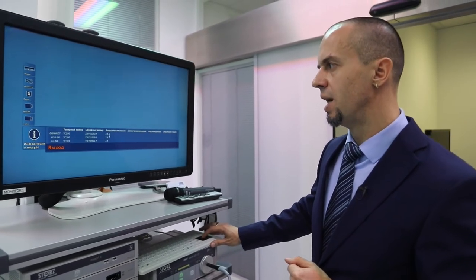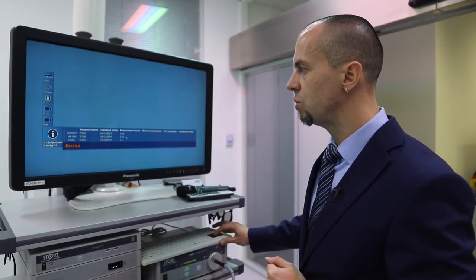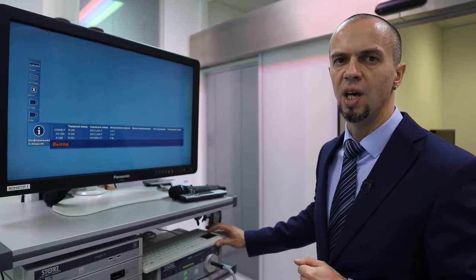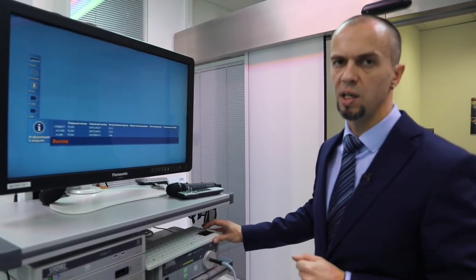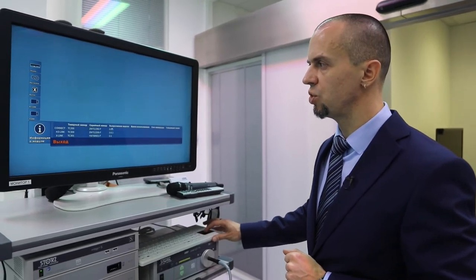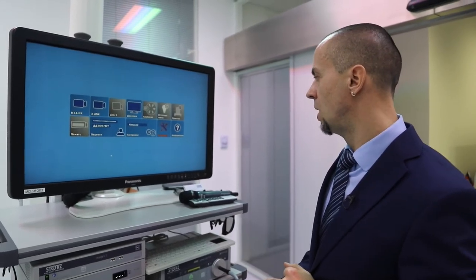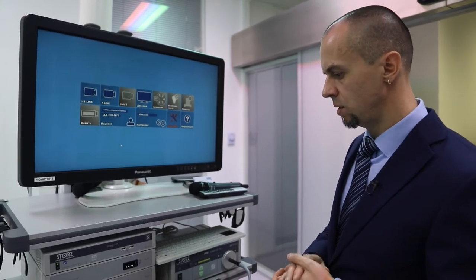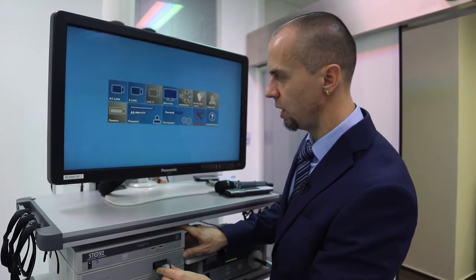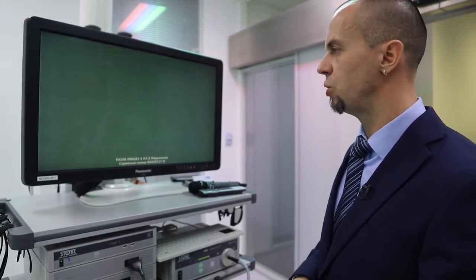Это очень важный момент. Если вы хотите, чтобы ваша конфигурация работала бесперебойно, здесь должны быть указаны три одинаковые версии прошивки. Если какой-то модуль прошит другой версией, скорее всего, будут сбои в работе — и первое, что вам предложат сделать, это привести прошивку к единой версии. После того как все настройки сделаны, подключаем источник видеосигнала — в данном случае это головка H3Z — и попадаем на рабочий экран.